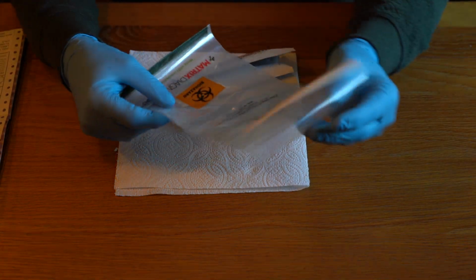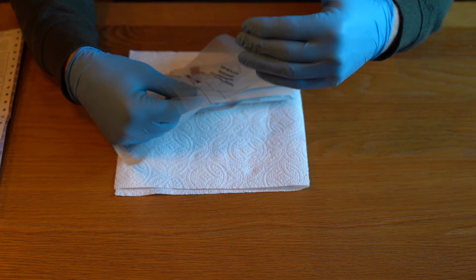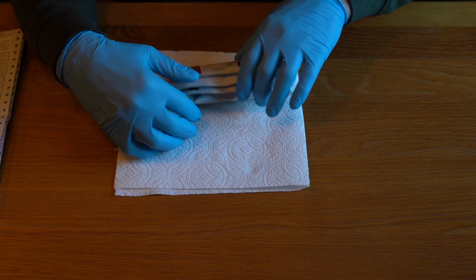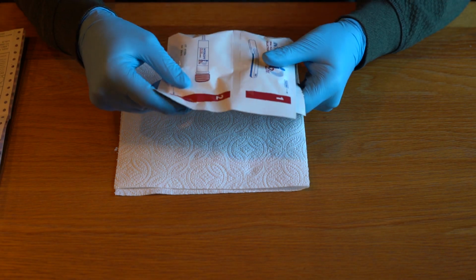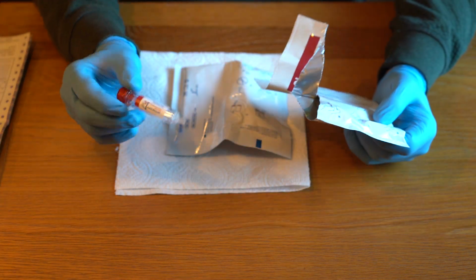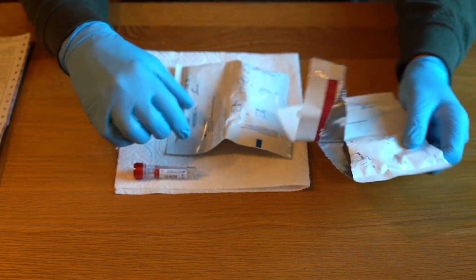We've also got a transit bag. This is in two parts, a back part and a front part. There needs to be separation between the samples and the form when you send them back to the lab, so that's why there's two parts to that. I'll show you that in a little while. And we've also got two bags here. In one side of each of the bags we have a vial which clearly has the expiry date marked on it, so please don't use out-of-date kits.